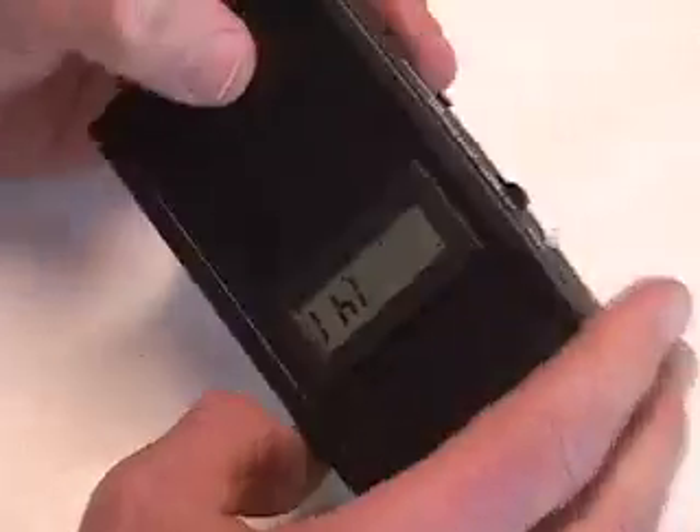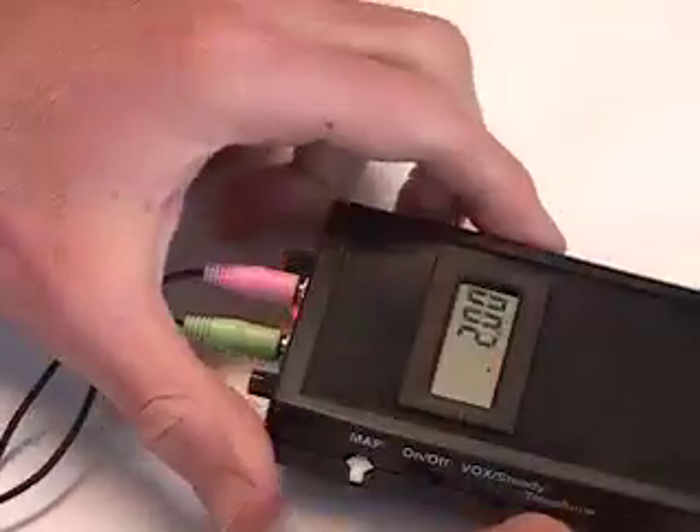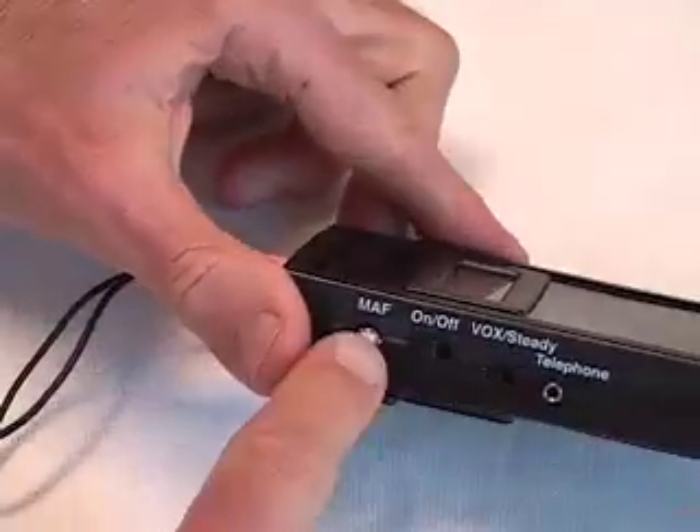The Pocket Speech Lab also has a clock that measures how much time your vocal folds were too tense or too relaxed. The Pocket Speech Lab and Big Mouth also have a masking manual button.